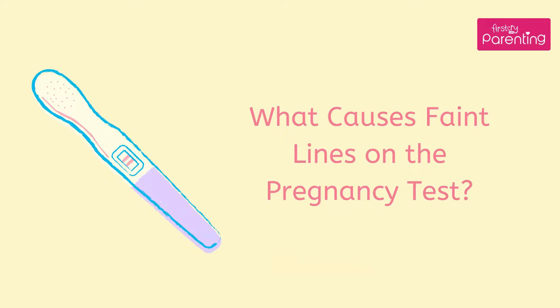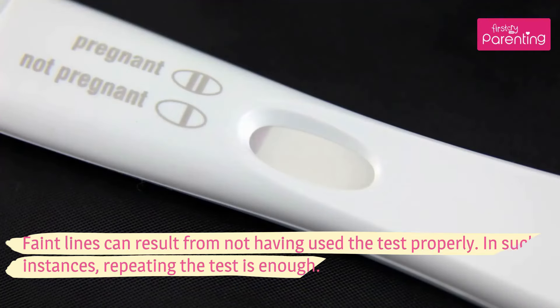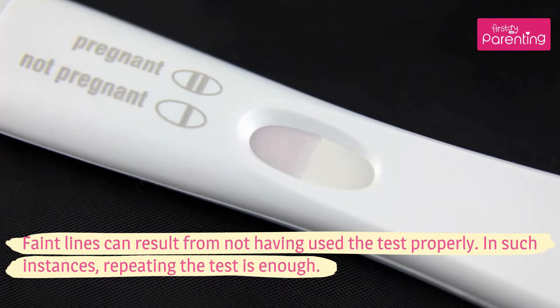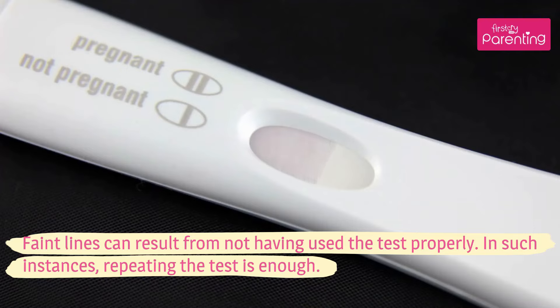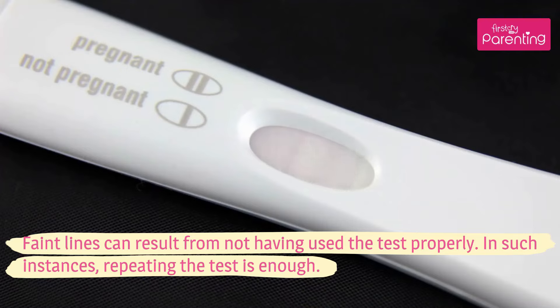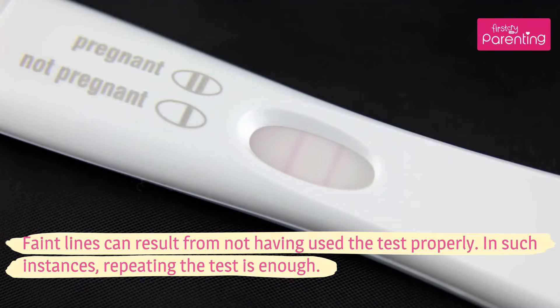What causes faint lines on the pregnancy test? Number 1: Misreading the instructions. Faint lines can result from not having used the test properly. In such instances, repeating the test is enough.